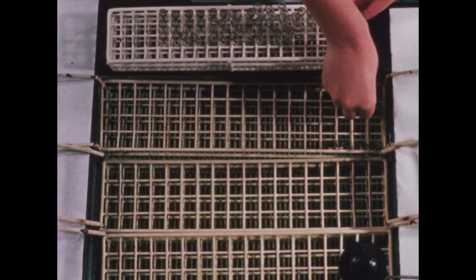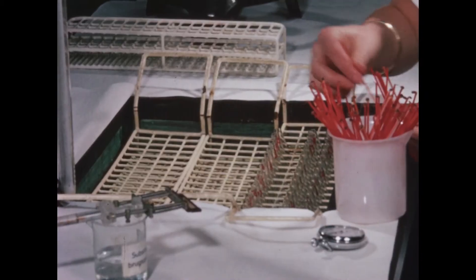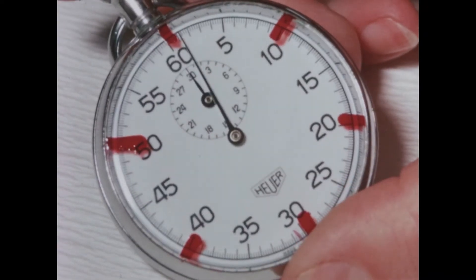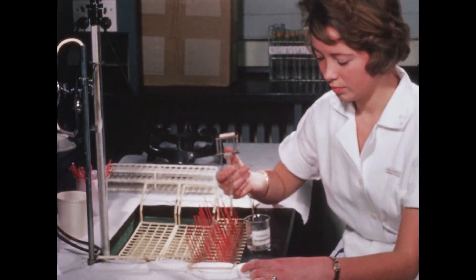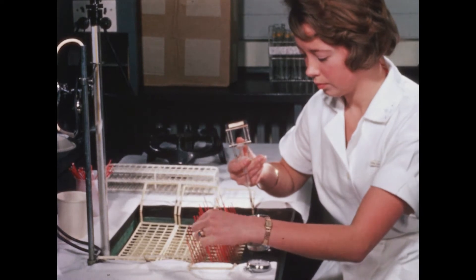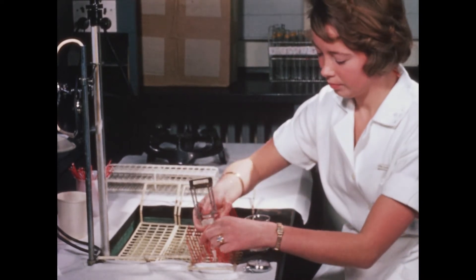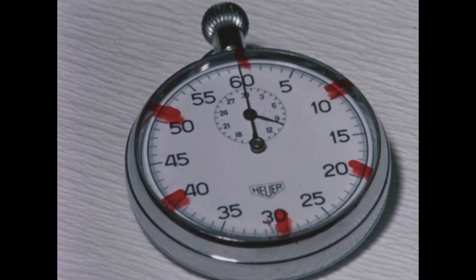Since normally the enzymatic activity in the cells is thousands of times higher than in the plasma, only a comparatively small number of cells have to undergo degeneration to result in a perceptible increase in the enzyme activity in the plasma. In enzyme determinations, the enzyme is usually afforded optimum conditions for developing its activity, as certain experimental conditions must be strictly observed, among others a constant temperature and reaction time.